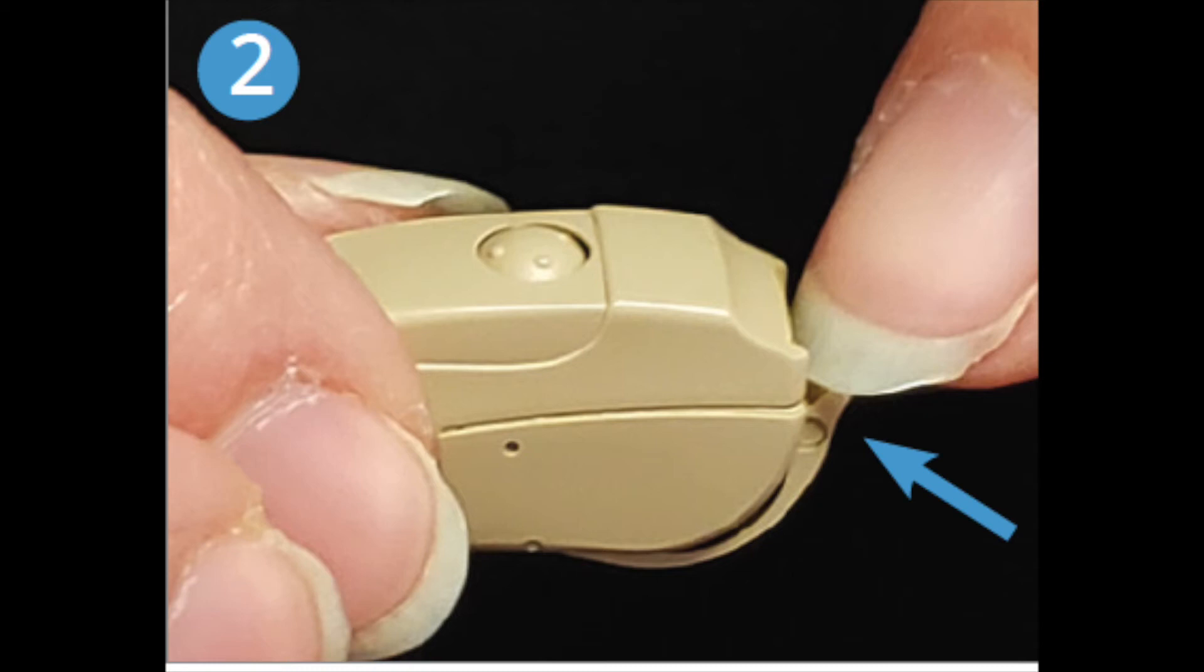This stage will power off the unit and save the battery while ensuring the battery doesn't fall out of the device.